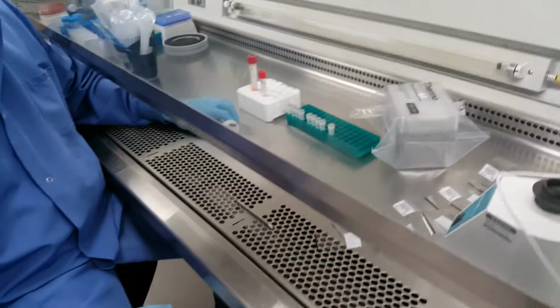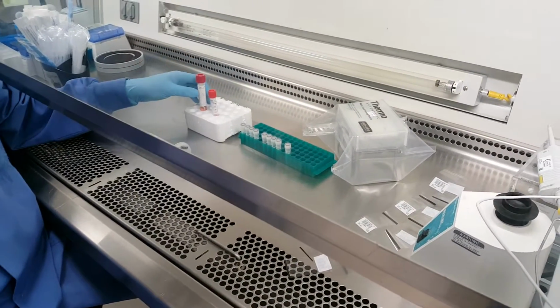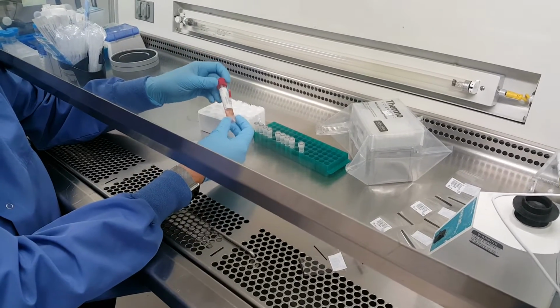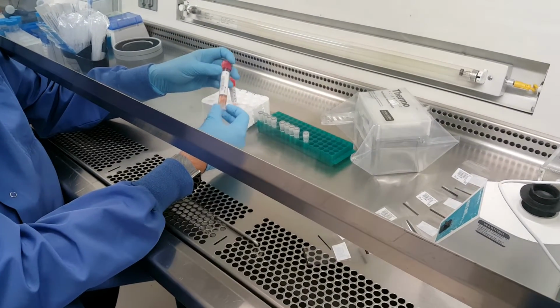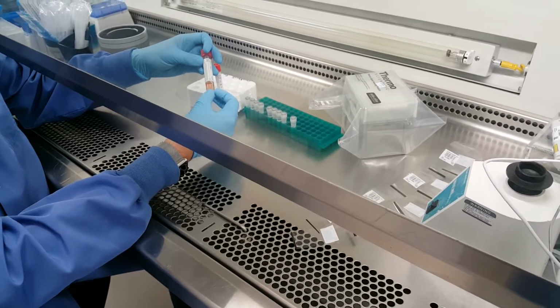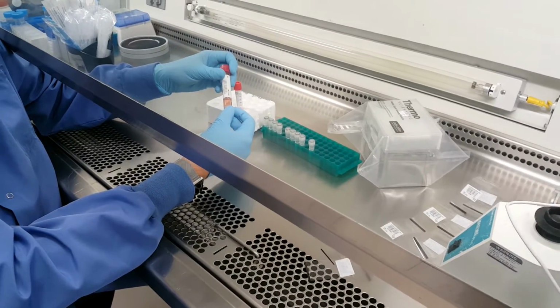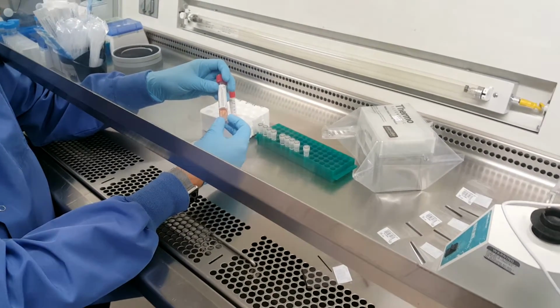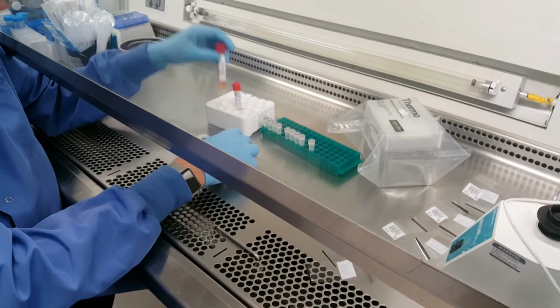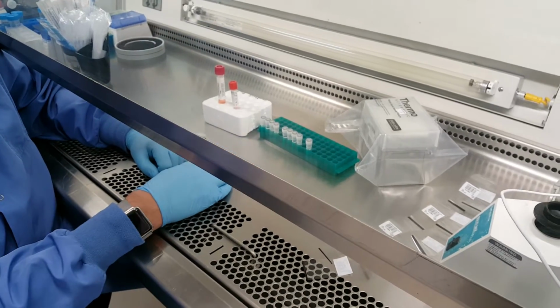So at this point, we are going to take the parent tube. This is the one that comes in through specimen management. There should be 2 swabs inside. If there are less than 2 or more than 2, please make a note on your worksheet. We do not have a copy of the worksheet here, but essentially you record the information that's on there, the start time, the finish time, and you can read through it.